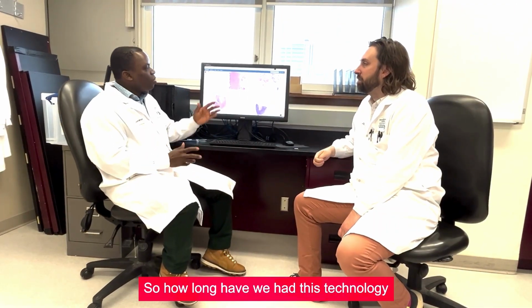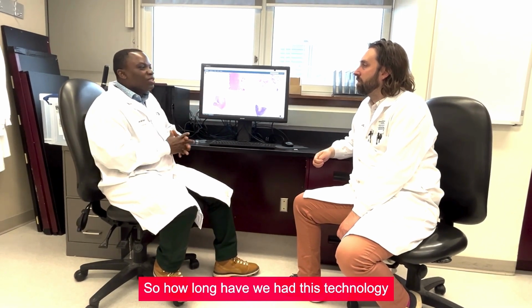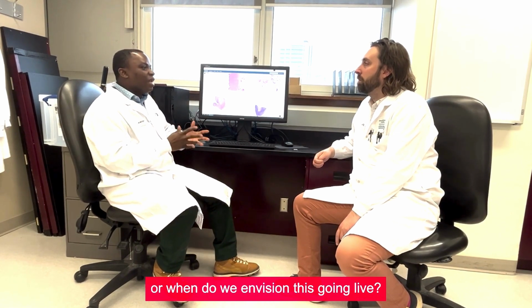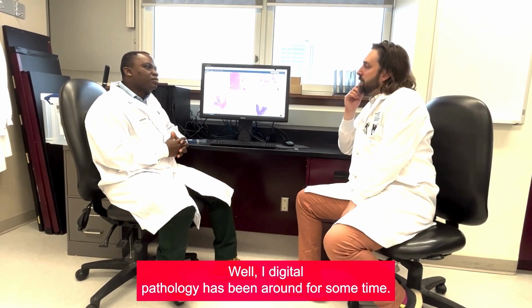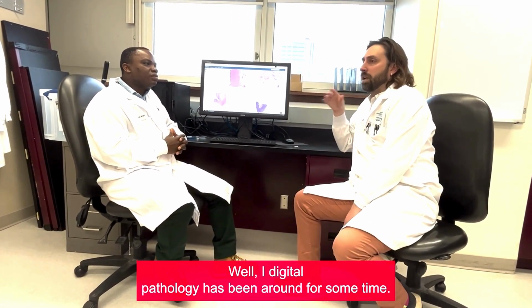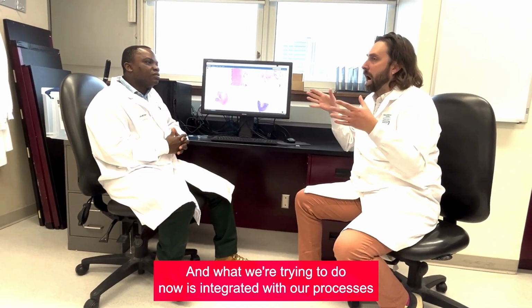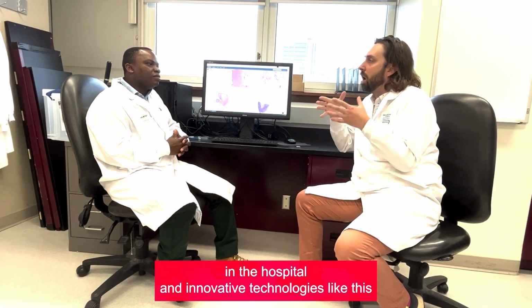Wow. How long have we had this technology, or when do we envision this going live? Well, digital pathology has been around for some time. What we're trying to do now is integrate it with our processes in the hospital.